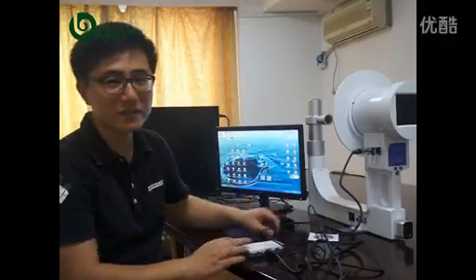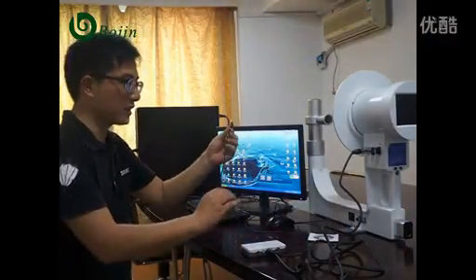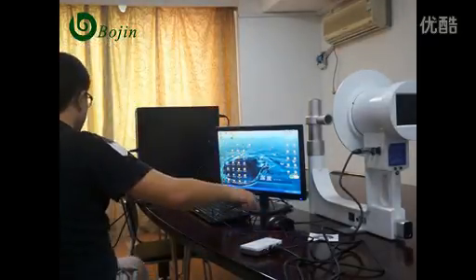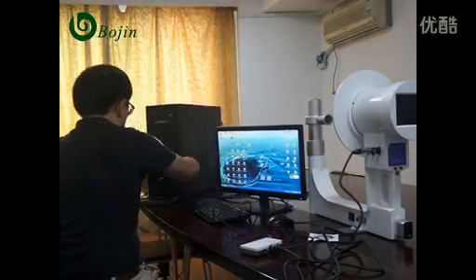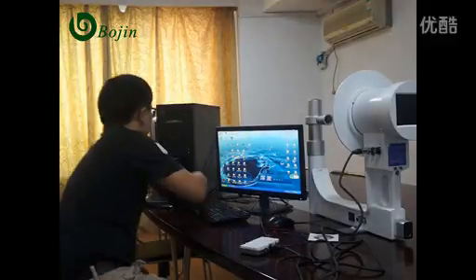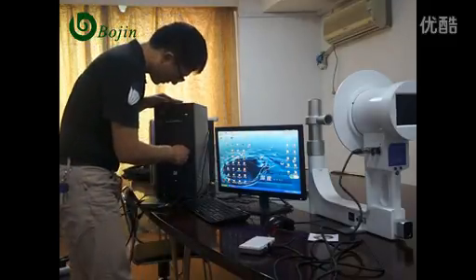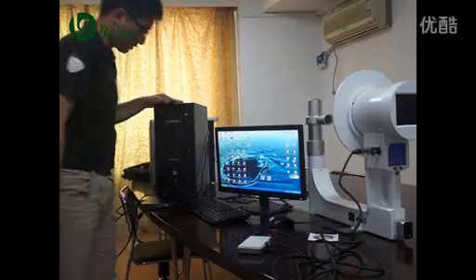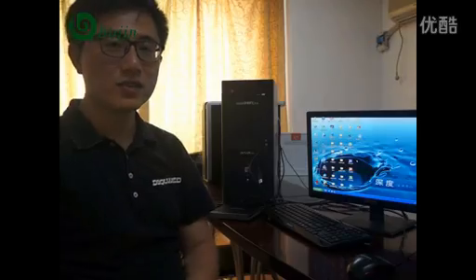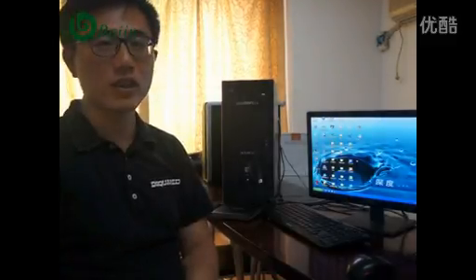Okay, we finished the installation. Connecting to the computer. Put it on. Okay, let's start the software CD installation.